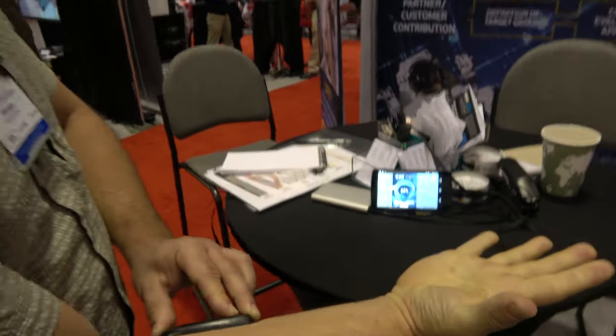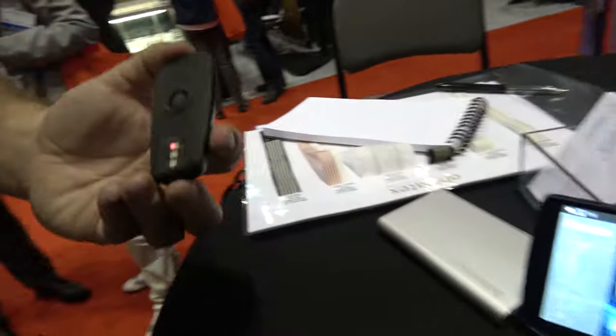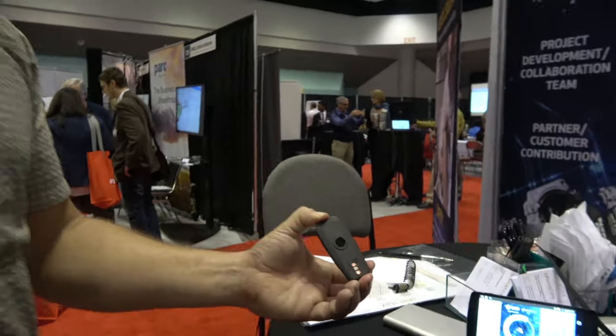It drops and drops. We've developed it for European Space Agency, for the astronauts, to surveil the muscles during their stay on the space station. It works with a near infrared sensor — red light in different wavelengths.